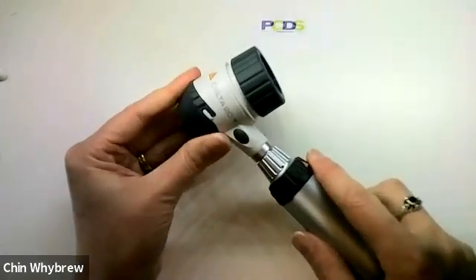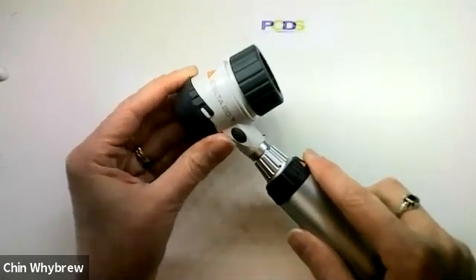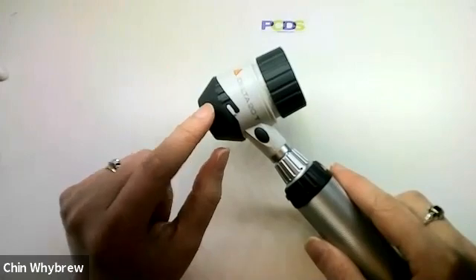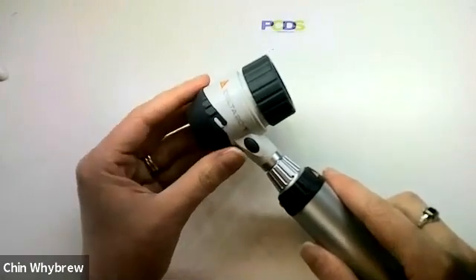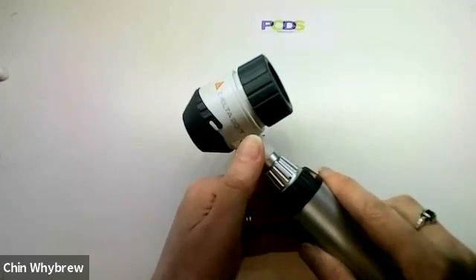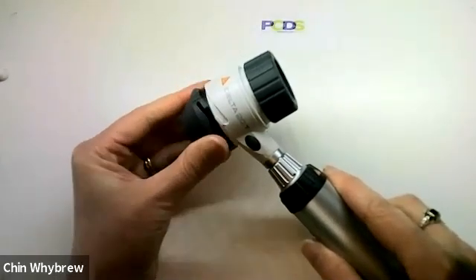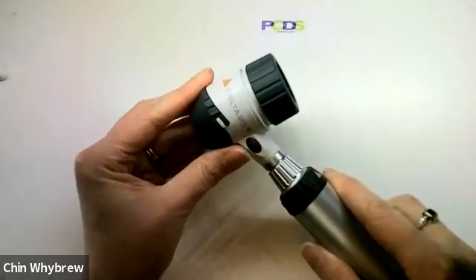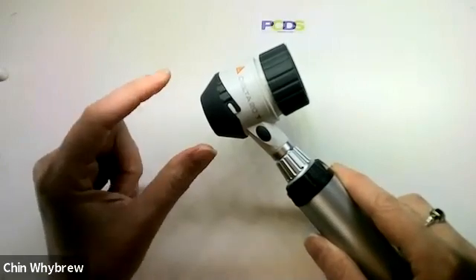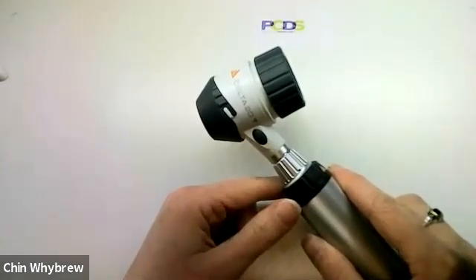The end plate will come off if you want it to. The old style Delta 20 had a separate end plate — one for polarised and one for non-polarised. The Delta 20T stands for 'toggle,' and that's what this button is for, letting you switch between the modes. The end plate can be replaced with a small contact end plate, which is available to buy separately.